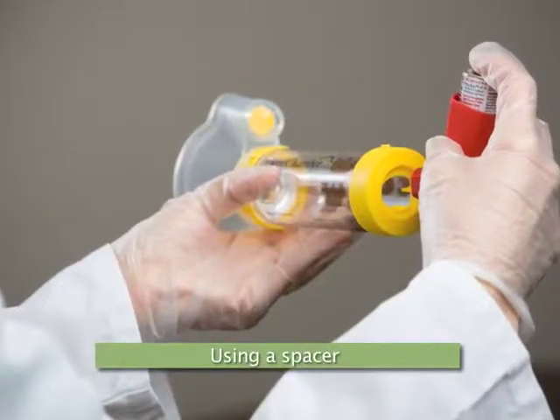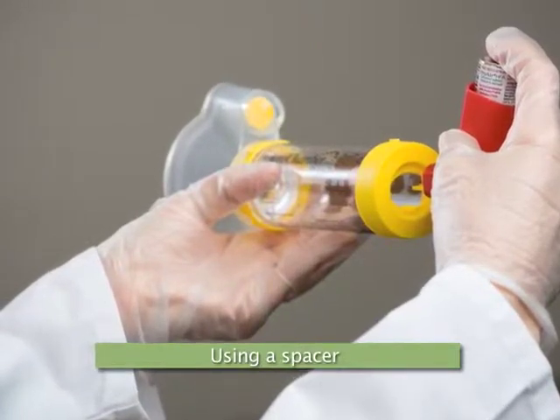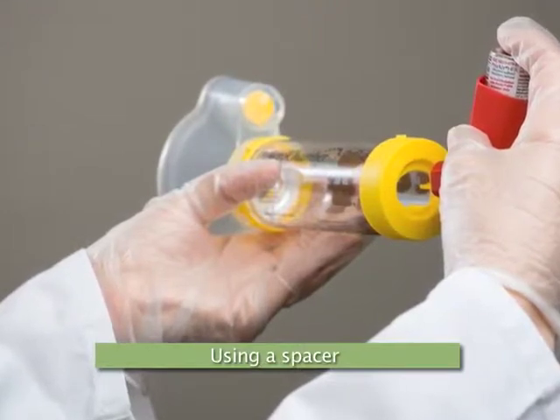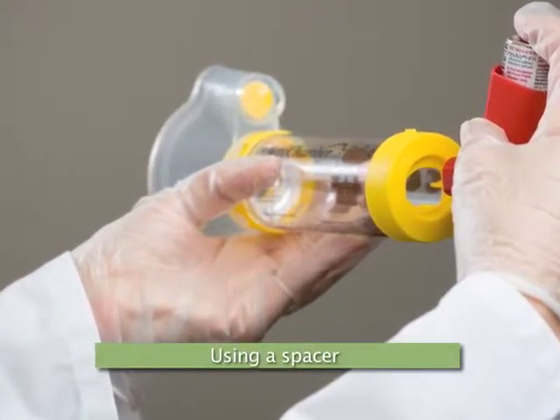What if a spacer device is used? Spacers, sometimes referred to as holding chambers, make it easier to coordinate steps when using an inhaler. The inhaler is shaken, as typically done prior to administration, then inserted into the flexible rubber end of the spacer.